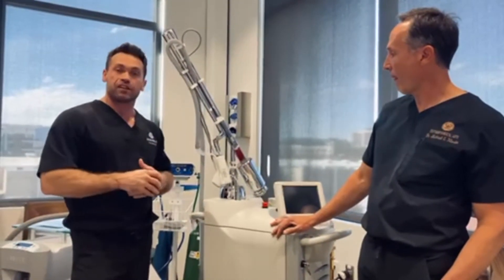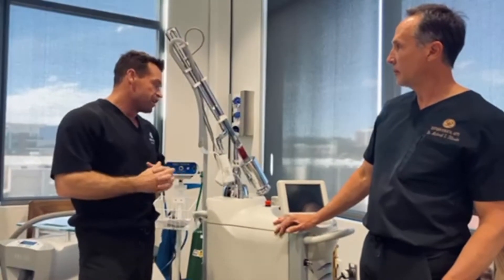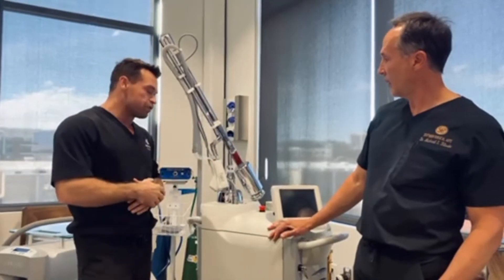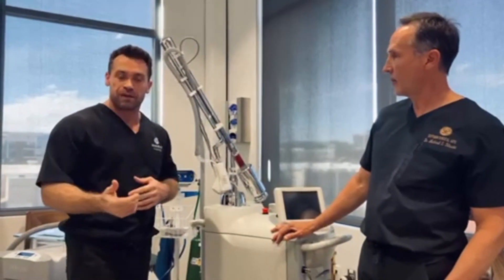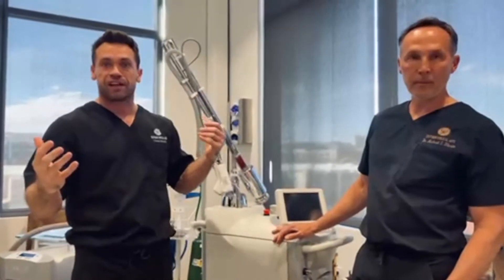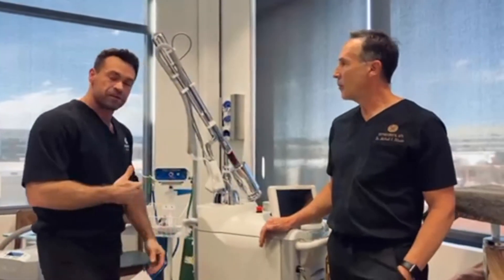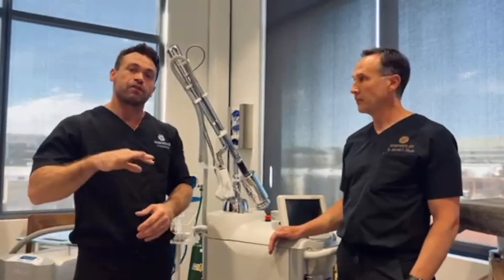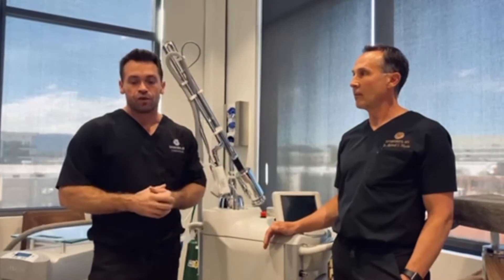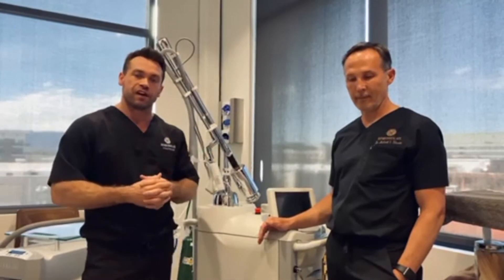Now a lot of companies are looking for that halo-esque result, comparing to what many consider the gold standard in the industry, which is the HALO. This cool technology means that patients can get incredible results in a med spa setting without an operating room. It can be done comfortably with things like Zimmer chillers and Pronox, delivering results where the patient can have makeup on in a couple of days. There's a big world of tech out there, but this is what this device is all about.